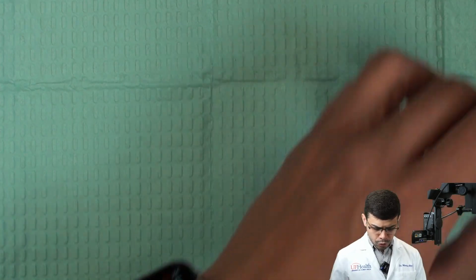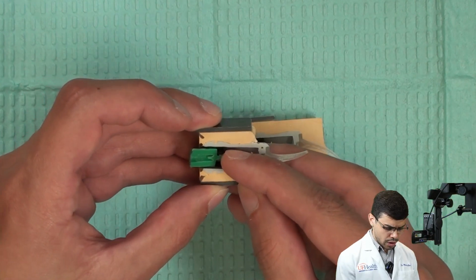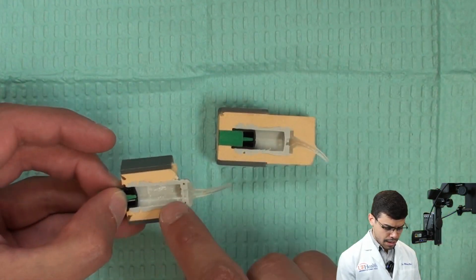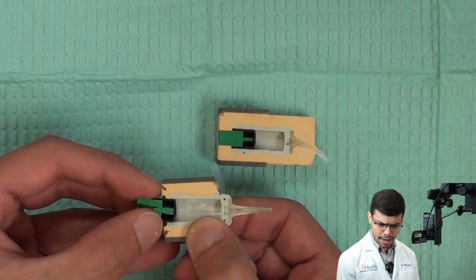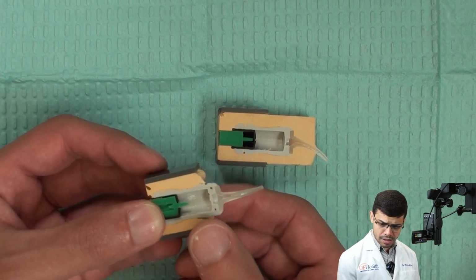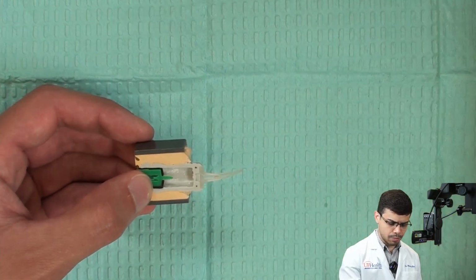Now, just for you to have quick information on how this system works, this is how the capsule works. It's very important to understand that whenever you have the capsule here, it's going to be in this stage, which is not perforated, and the powder is going to stay on the right side while the liquid stays on the left side, the black spot. When you click that, you perforate and you mix both liquid and powder, and then this is going to go ahead and mix powder and liquid, okay? And then it will be extruded on the capsule.